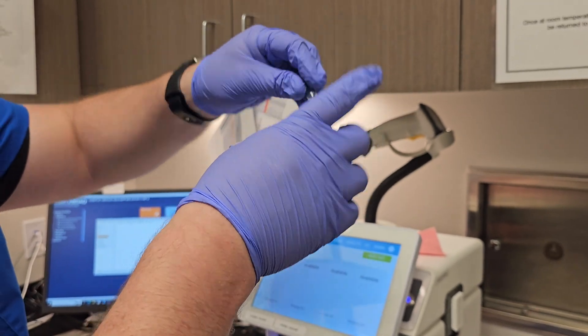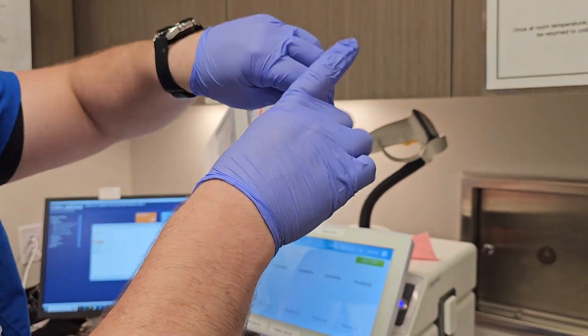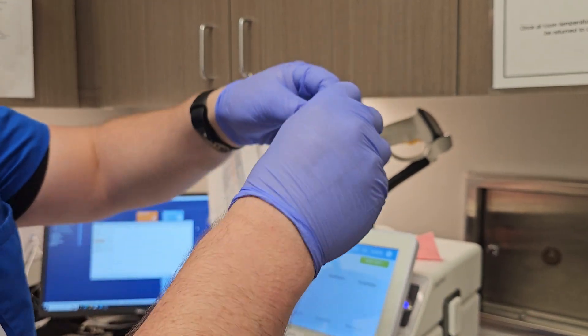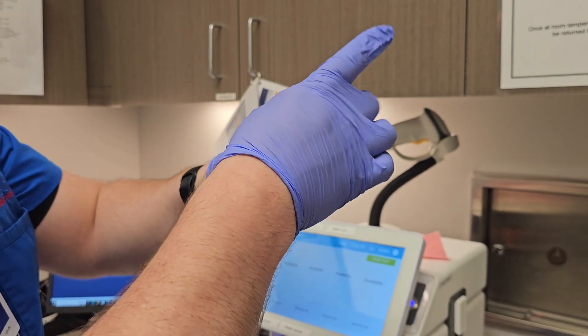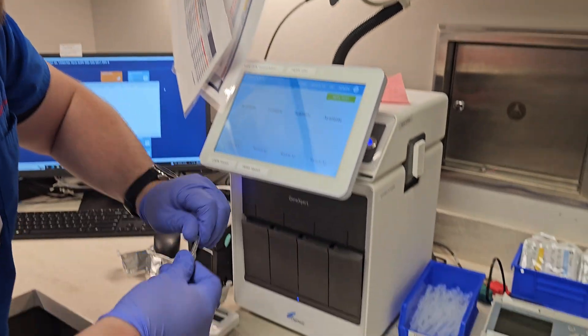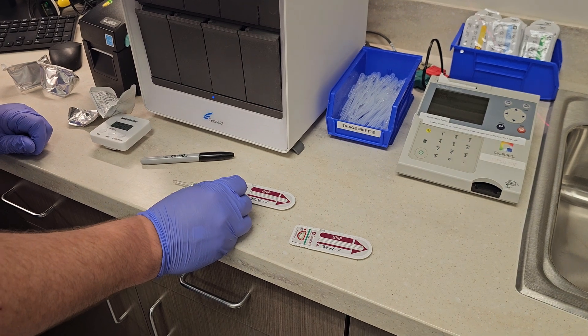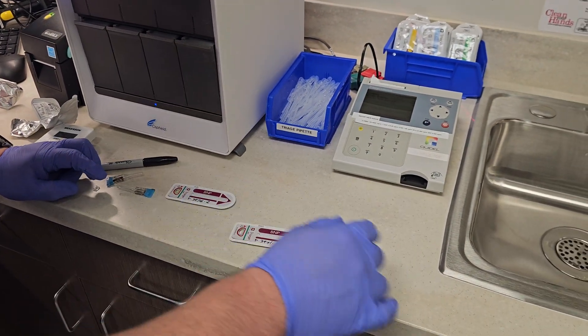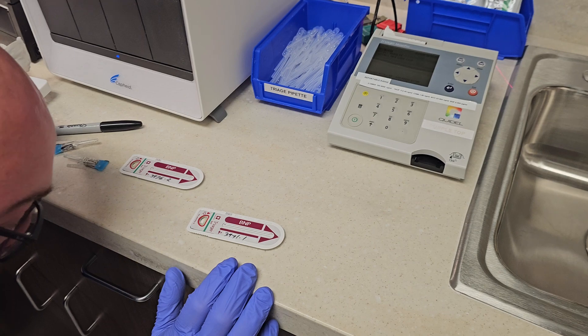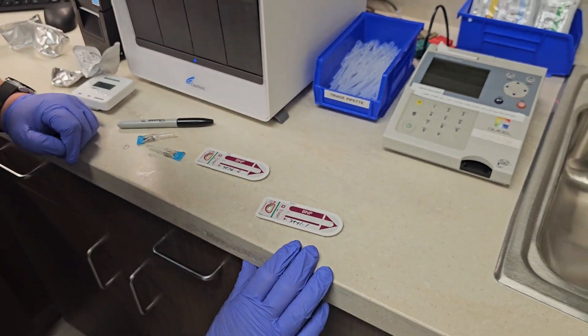Flick, invert, flick, invert, flick, invert, flick. Okay, inoculate it, and now this is good to go.